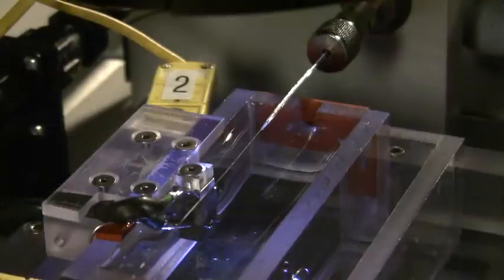An 014 guide wire is fed through the adapters on the rotary fixture and the stent is tracked over the guide wire. A hydraulic inflation device expands the stent to a predetermined pressure.